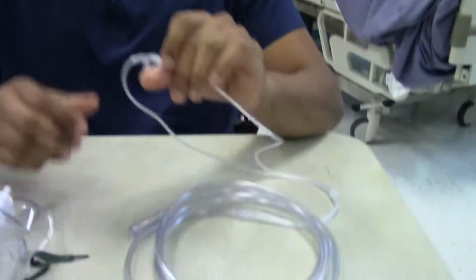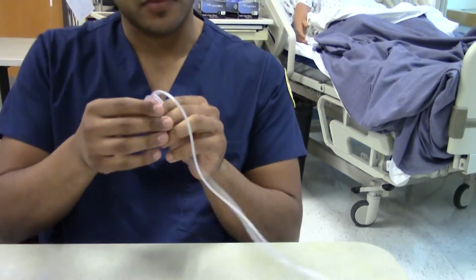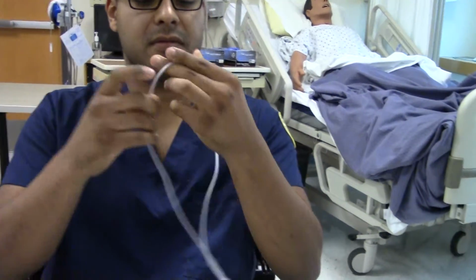Hi, my name is Race Nelson, and I'll be showing you the oxygen competency. First, we'll be doing the nasal cannula. It's a low flow device. I'll show you how to put it on.